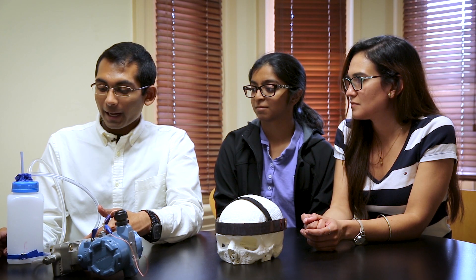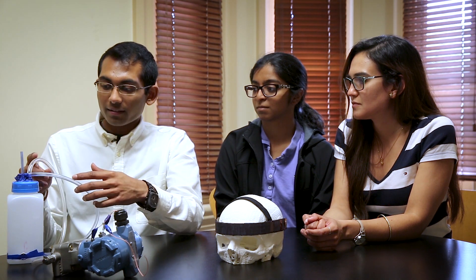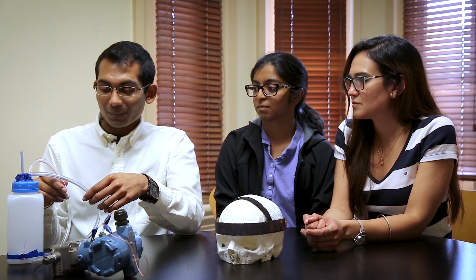Here is a pressure transducer that measures the differential pressure of a fluid. Here is a vessel that will be filled with water. Seen here are some tubes that go in to fill it up with fluid. This represents the current invasive method that clinicians use to measure pressure inside the head.